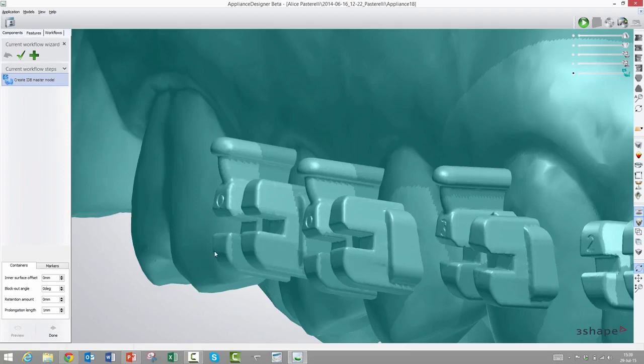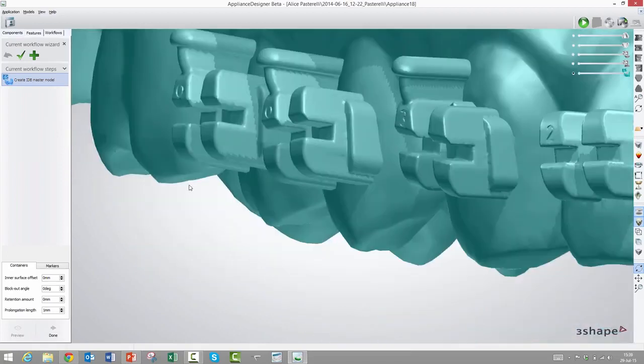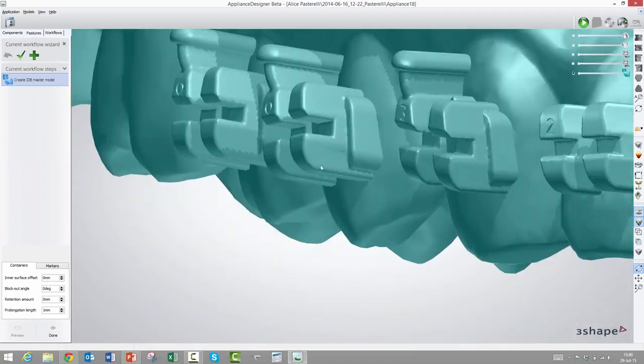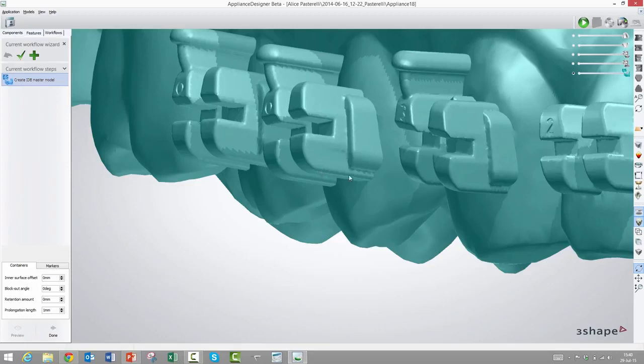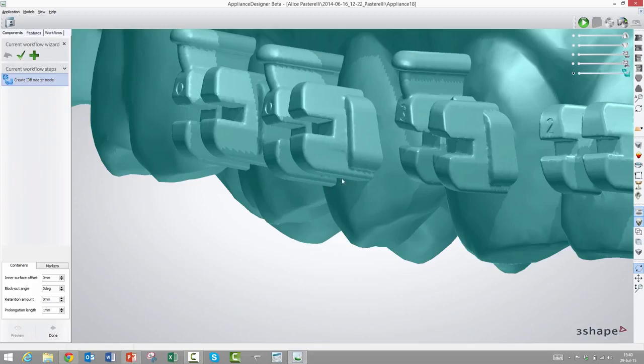If we look at this bracket, the cavities here under the wings, material will fill that out, and the same with the hook that would be supported by material underneath. This inner surface offset will make it either too big or too small. Now it's actually done with the calculation, so maybe it's more evident what I meant. The next one is called block out angle, and what it does is that it makes the walls tapered of this material that has been added. So if we increase the angle here, the block out angle, then it will sort of angle out.